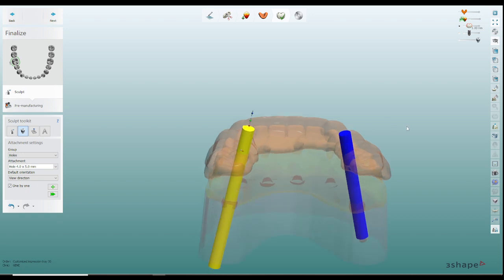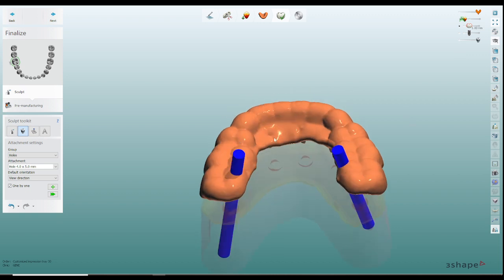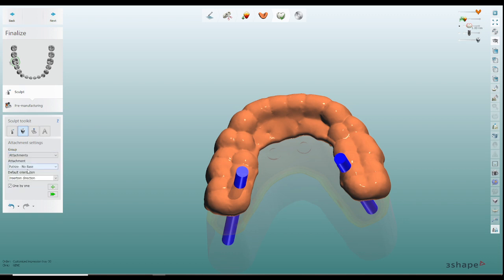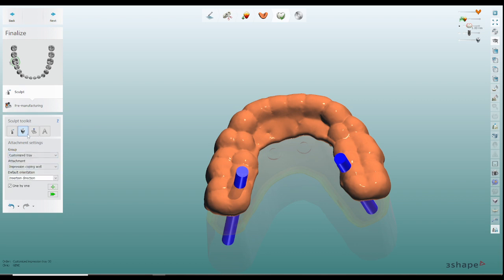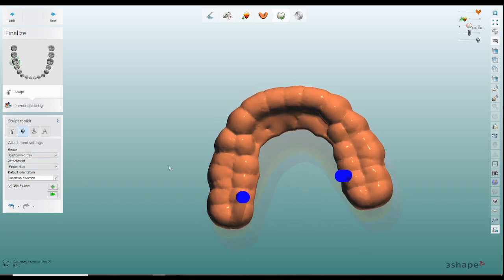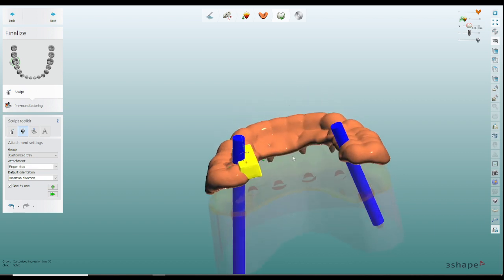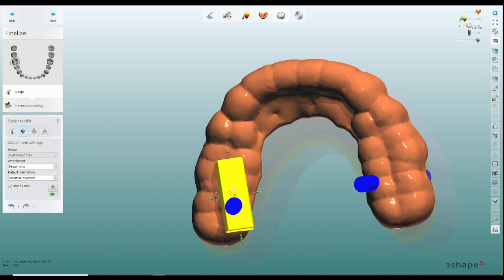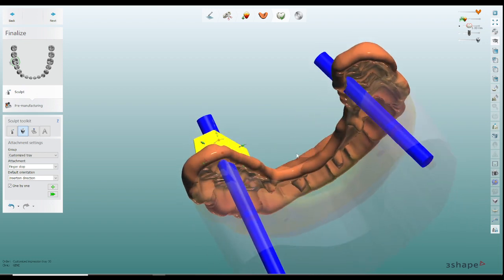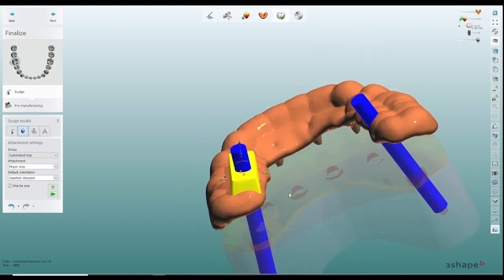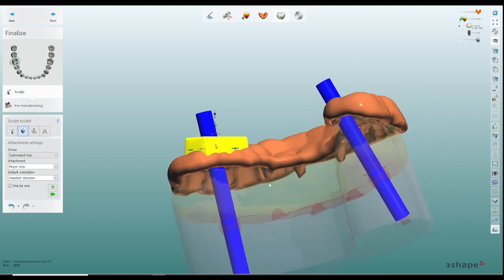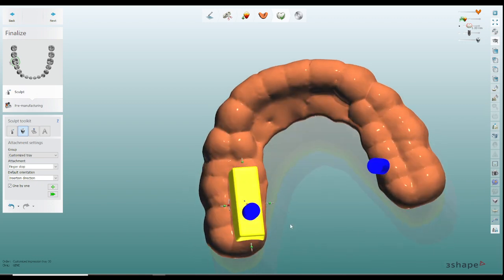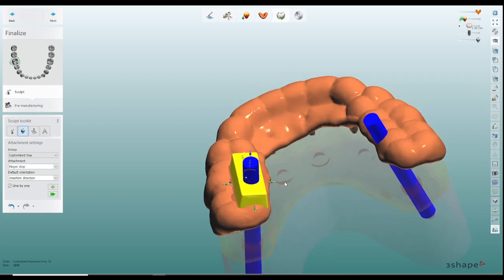What I'll do is I don't stop right here, what I actually will do is I'll go into the group of custom trays and I'll actually add a finger stop on top of these things. So all you need to do is rotate this and move this right over the hole that you've produced. What this will do is create a little bit of a better surface for you to place a tube that you usually use for surgical guides, but I've started using these very recently for these drill guides.